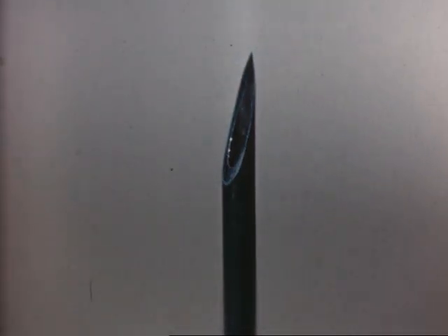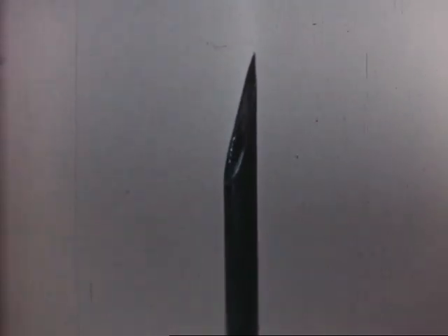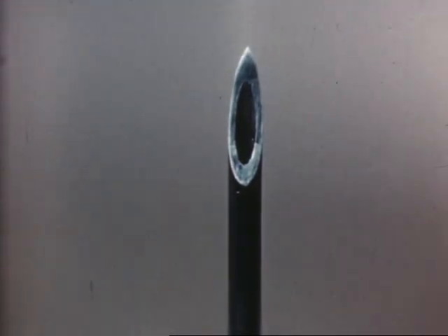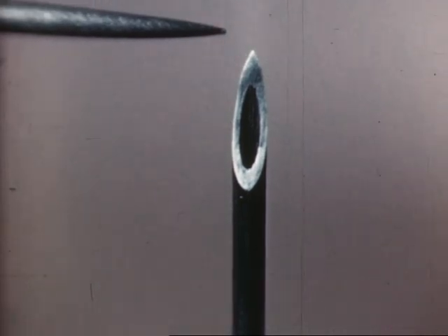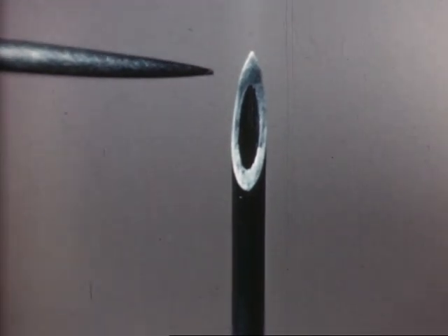And now you see a really good needle for venipuncture. Its tip is just as sharp as a scalpel point. The bevel is hollow ground and of medium length, and is honed smooth in such a way as to impart a razor sharp cutting edge from the tip to the middle on both sides.